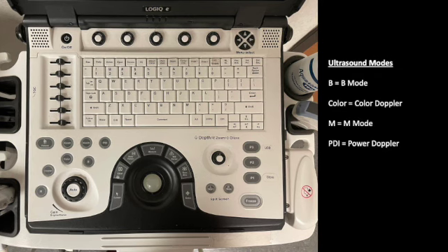We talked in our last lecture about the different types of ultrasound modes, including B mode and M mode and color mode. All of those are going to be located here on the left side of the keyboard. Now there's a few other options too, so you'll see a button that says Doppler. It is Doppler, but it's a different type than color Doppler and power Doppler. So just know that these four that I've circled are going to be the four most common that we utilize. And then as you do more advanced technique, you may start using pulse wave Doppler, continuous Doppler, and those kinds of other buttons over there.